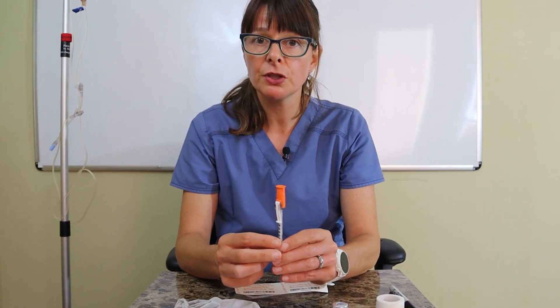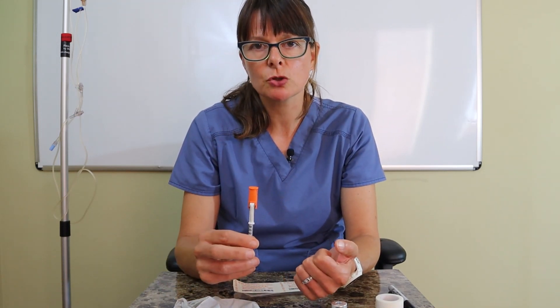If you need to administer more than 50 units you would have to use a different syringe that holds up to 100 units. Theoretically you could use two syringes — for example, 50 in one and 28 in the other for a dose of 78 — but we don't want to poke the patient twice. So always make sure you pick the right size syringe.